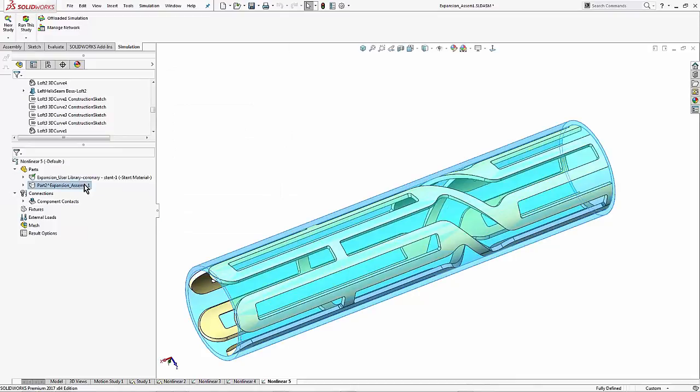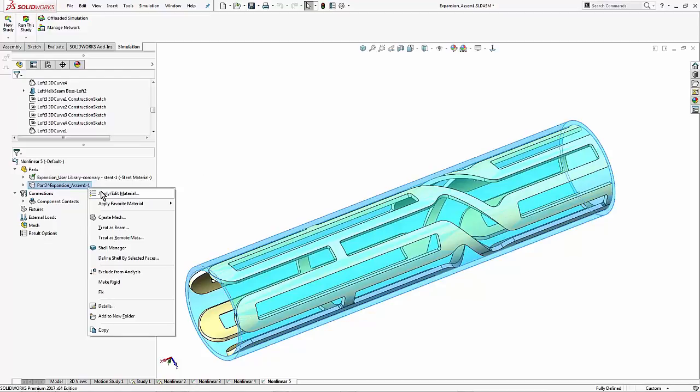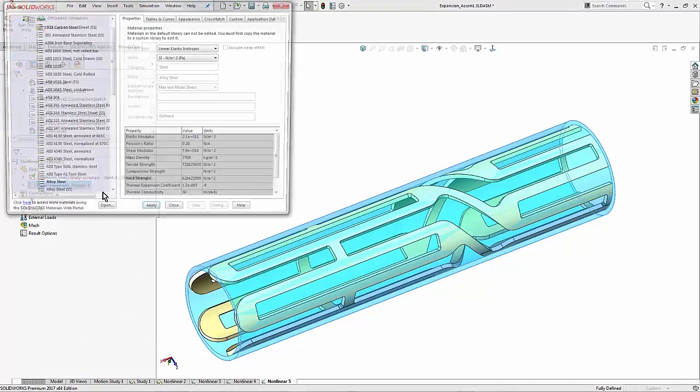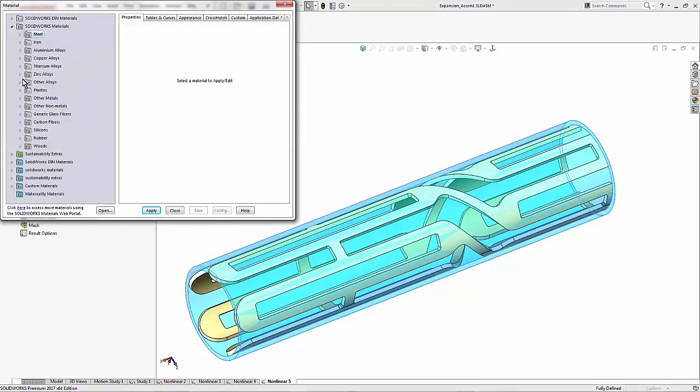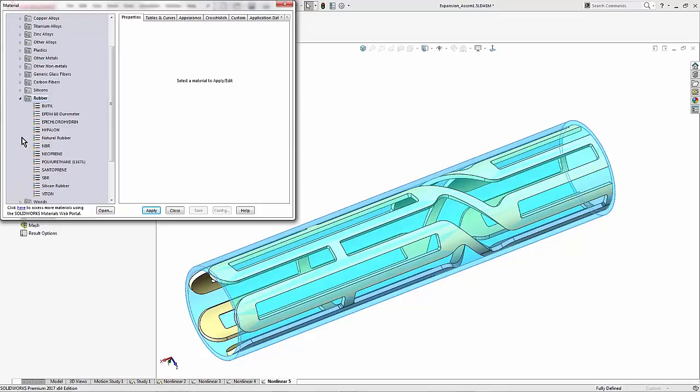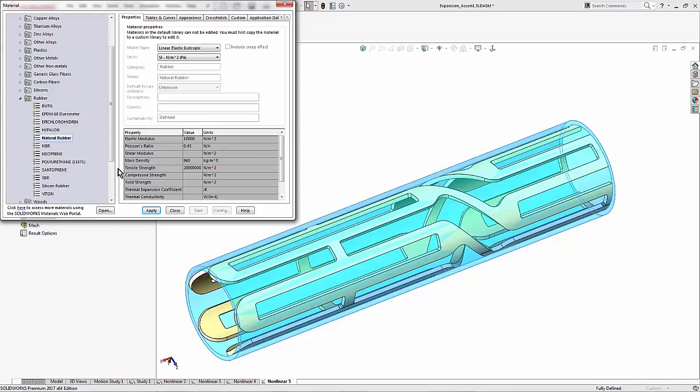And then think about what to do for the outer cylinder. Again this is representing either the plaque or the blood vessel wall. So I would need another custom material for that. However I don't have one for that biological material. So for now I'll just represent it with some rubber with some really low stiffness.